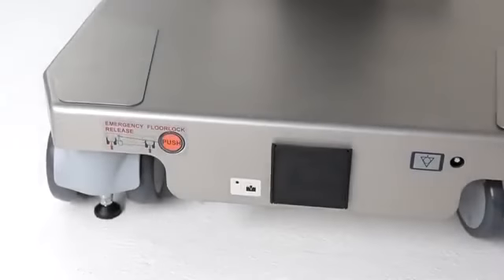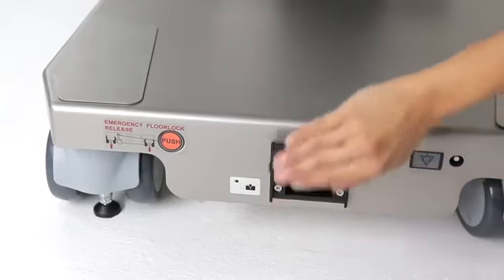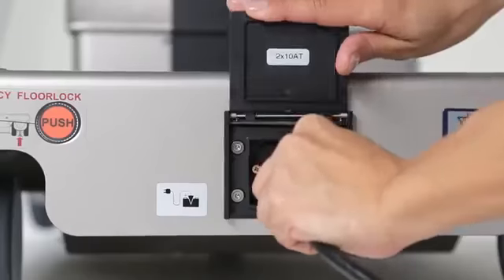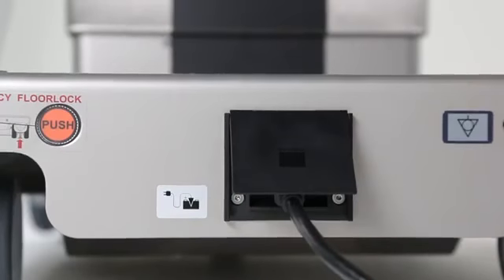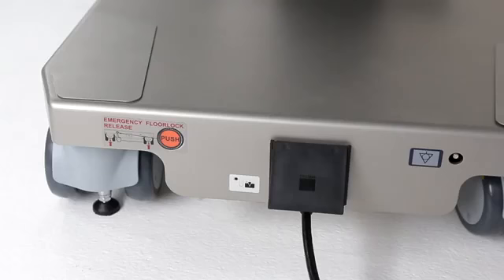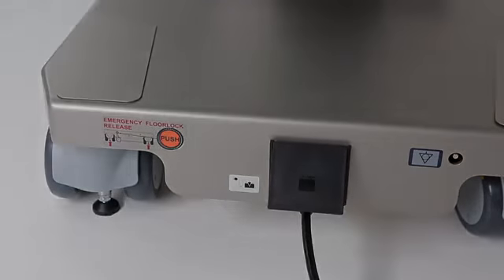The power outlet is strategically located at the head of the table for convenience in plugging and unplugging the table during the charging process. However, the two lithium-ion batteries supply enough power for a full week of normal use, thus reducing the need for unwanted cords.